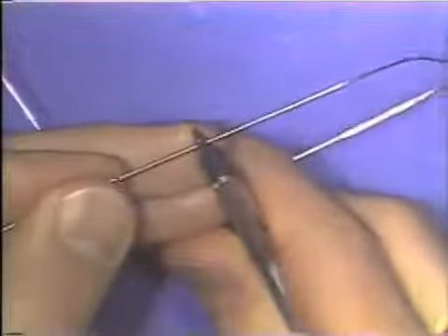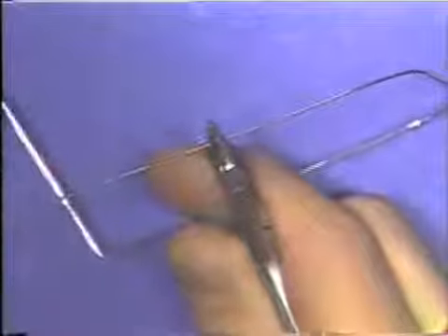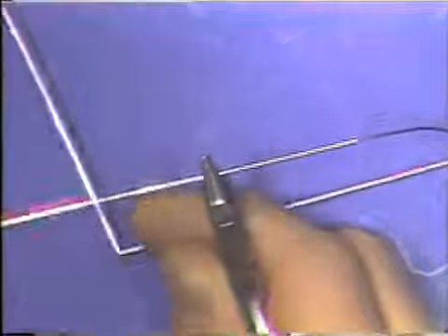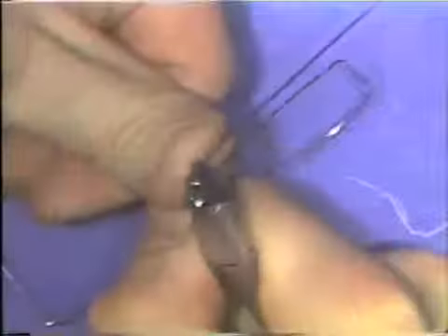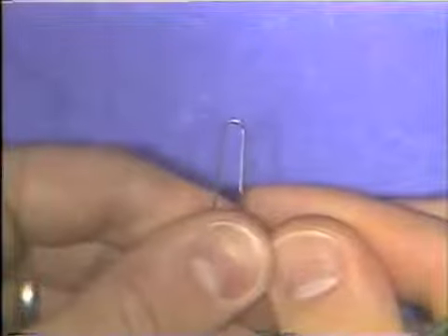To bend a loop in an orthodontic wire, you place the wire halfway back in the beaks of the plier, again at 90 degrees to the long axis of the beaks of the plier. With the thumb, the wire is pushed right around the round beak of the plier. A smooth loop is then formed, just to the shape of the round beak of the plier.